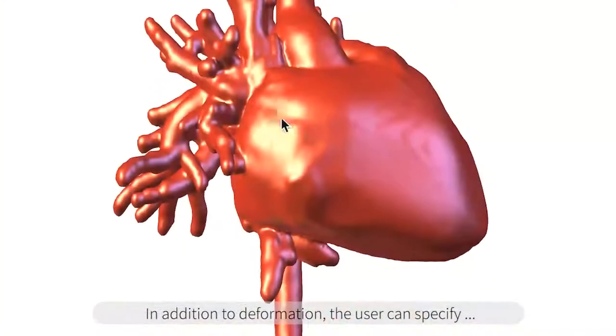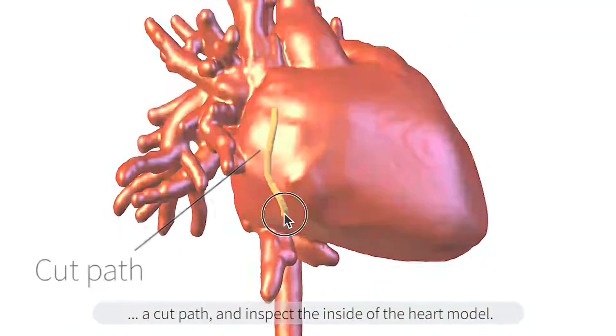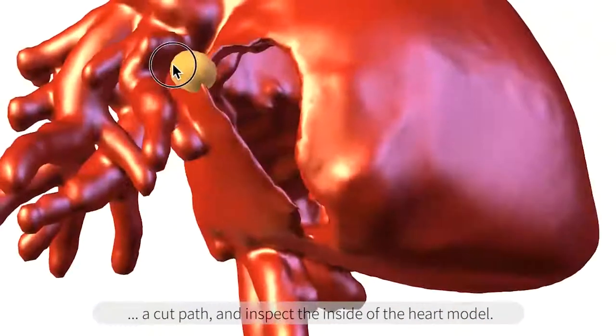In addition to deformation, the user can specify a cut path and inspect the inside of the heart model.